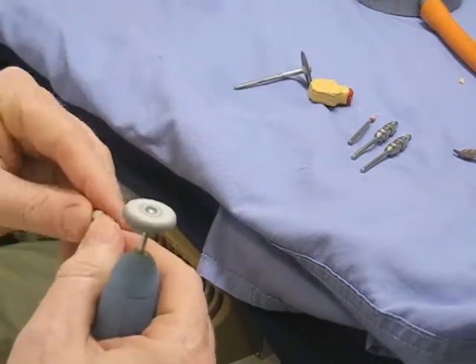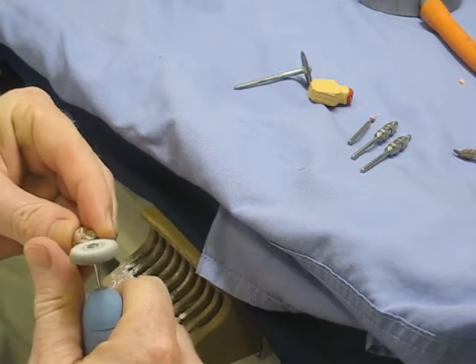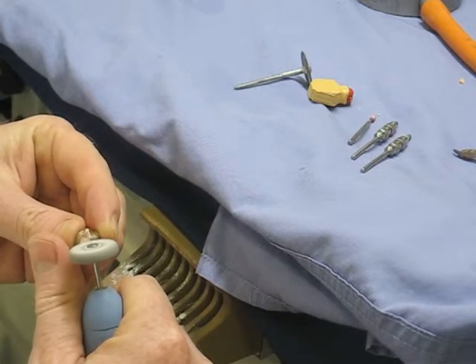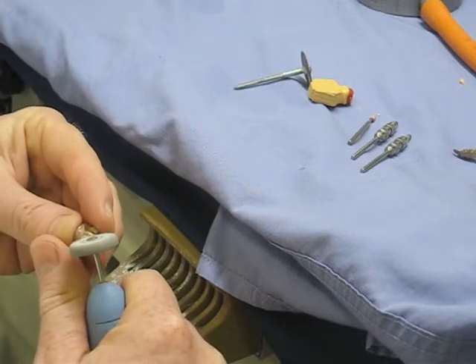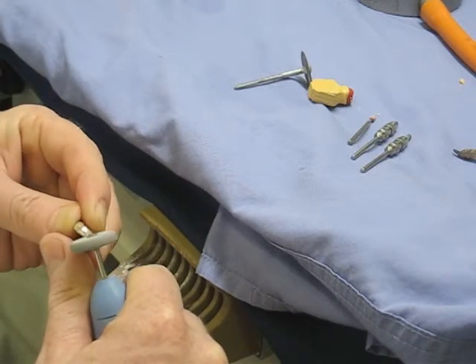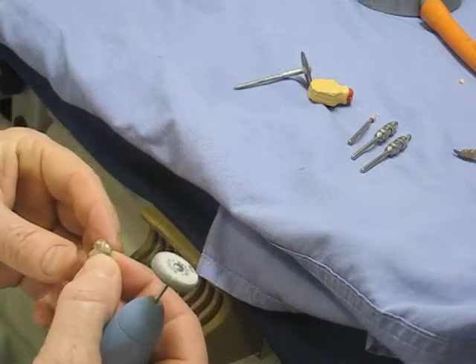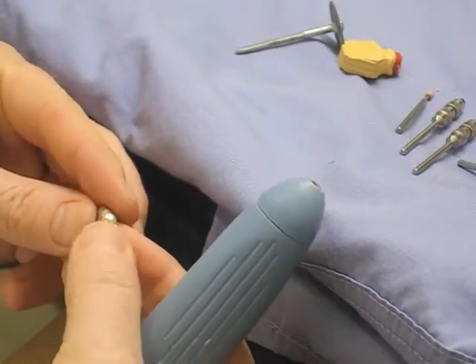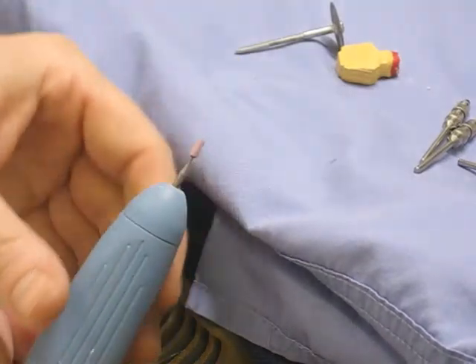Extraction is very important here because micro-fines of metal aren't particularly nice. They have taken beryllium and similar substances out of dental alloys now, so they're not as bad as they were, but it's still not good stuff. Be careful with that burr — it looks quite aggressive — and stay away from the margins. Then we use a finer abrasive just to smooth off and create a nice surface finish where we've taken the bulk away.